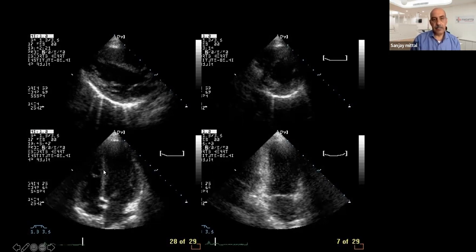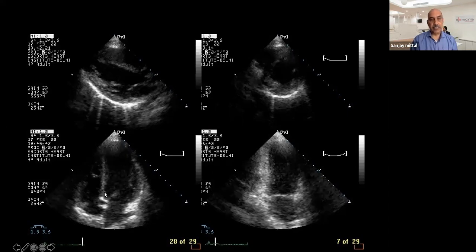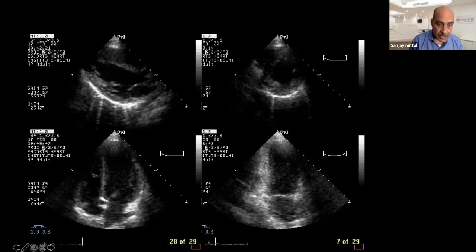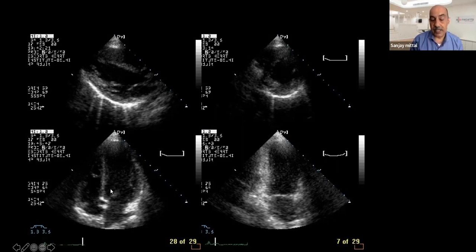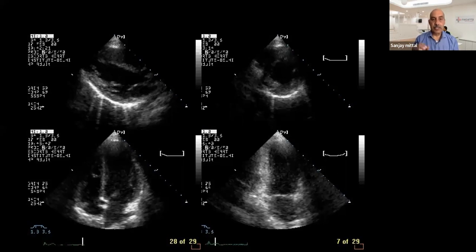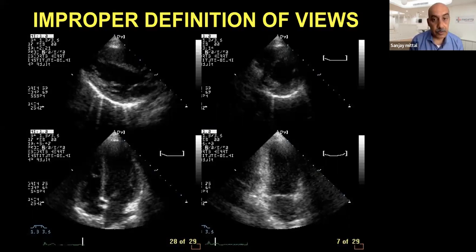If you have a problematic apical view, look at these segments in the short axis and confirm them before commenting. Also, in a four-chamber view comparing a patient with 45% ejection fraction vs the same patient's image seconds later appearing as 20% — this common mistake happens due to foreshortening. The transducer must be positioned truly at the apex: keep moving out and down until you lose the heart, then come in just to gain the heart — that is when you stop, to avoid foreshortening.